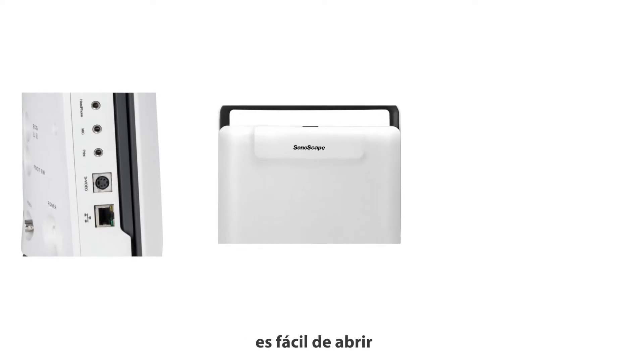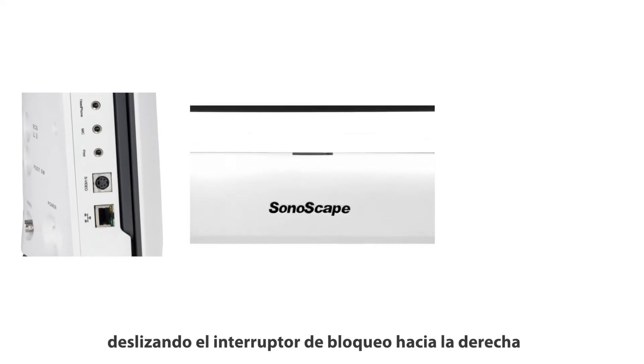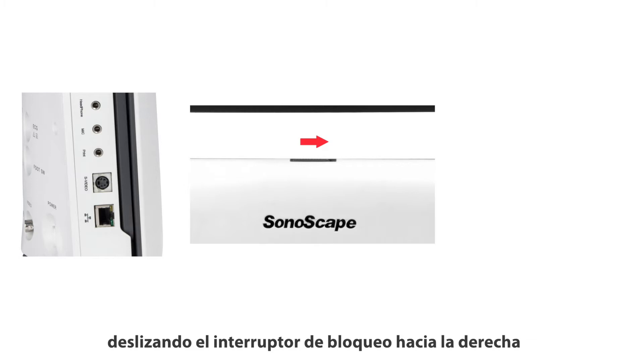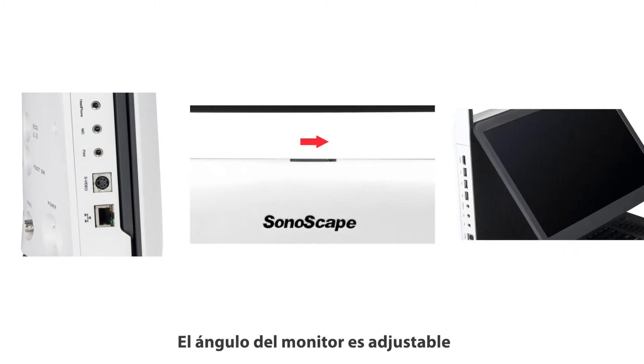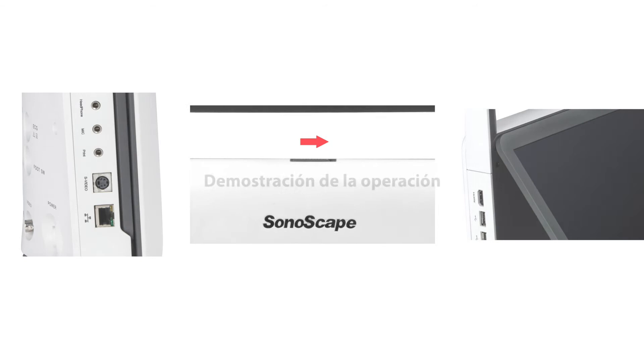It's easy to open by sliding the locking switch to the right. The monitor angle is adjustable to fit your preferred watching angle.